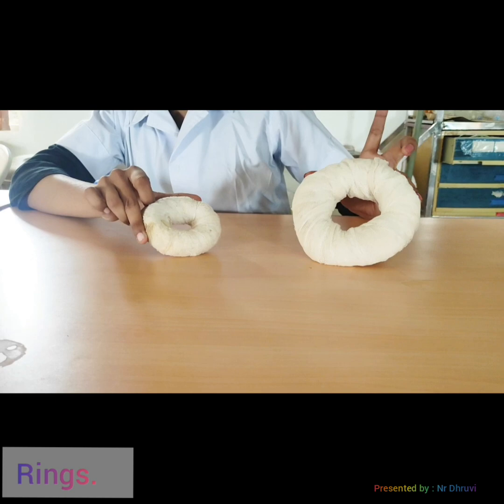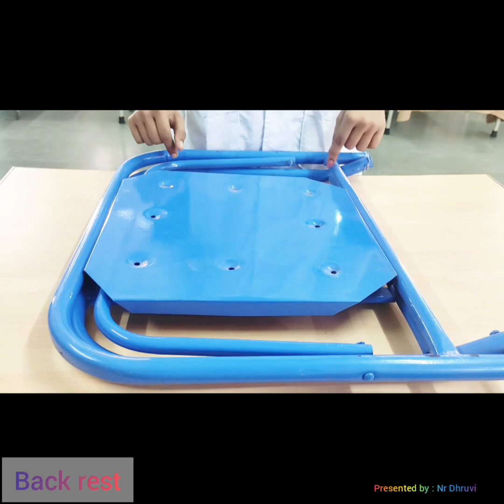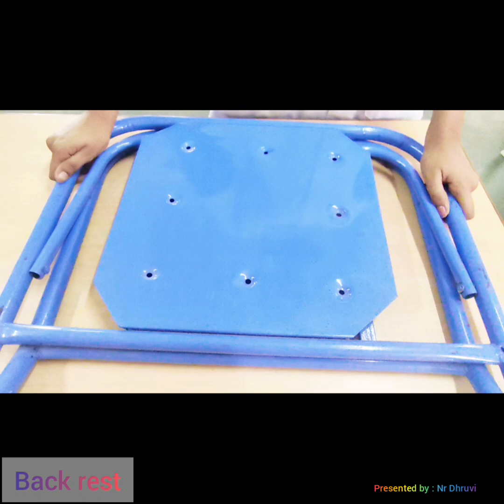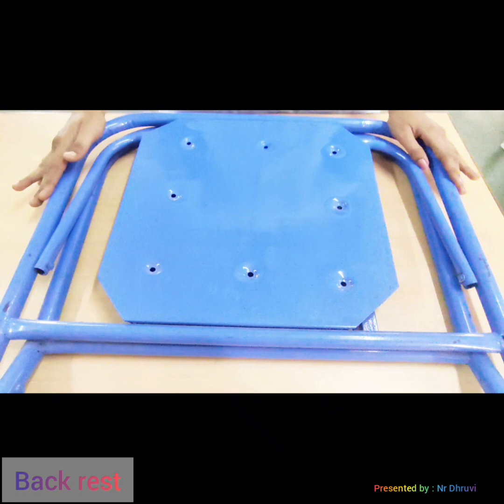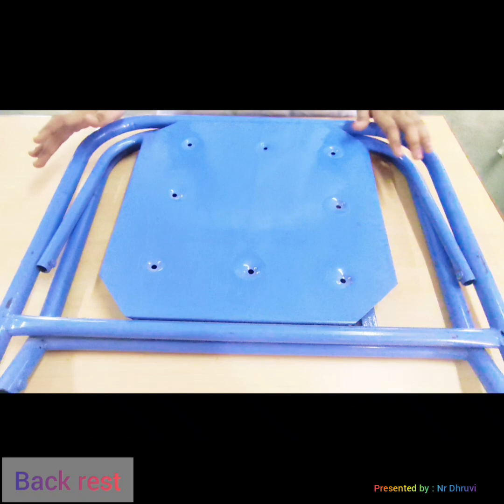The next device is the backrest. The backrest is a mechanical device which provides support to the patient in a sitting position. A pillow can also be used as a backrest according to the patient's comfort. It is used to relieve dyspnea in asthmatic patients by providing a fowler's position. It is also used in cardiac patients to reduce the workload on the heart.